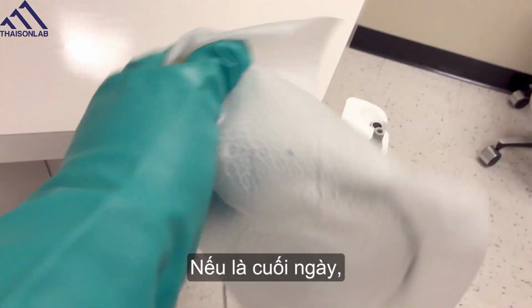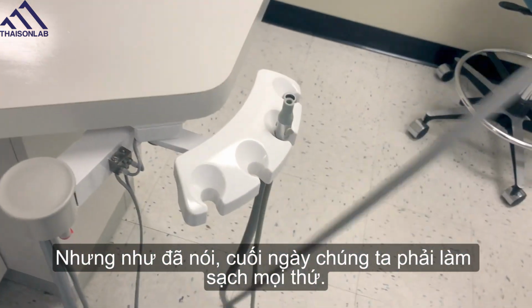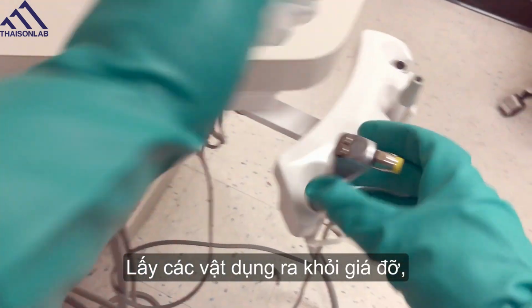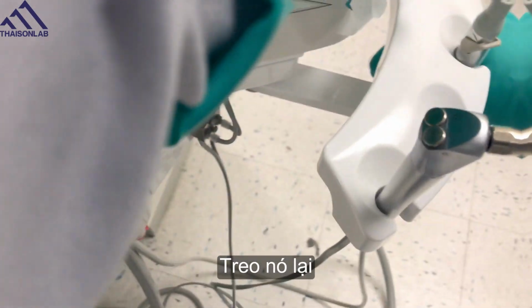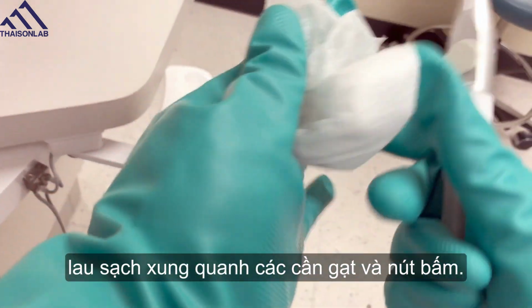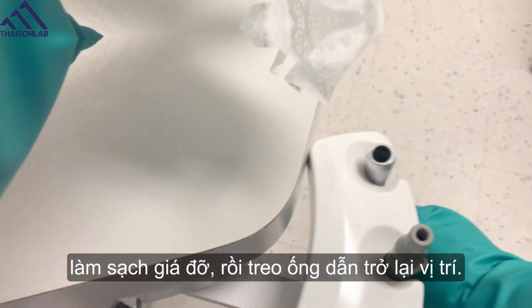If this is the end of the day, typically we do barrier these, but again, end of the day, we have to clean everything. Take the items out of the holster, wipe the holster down. Wipe the item as well as the hose. Hang it back up. Get around the levers here and the buttons. Go part way down your hose. Get the holster. Hang it back up.